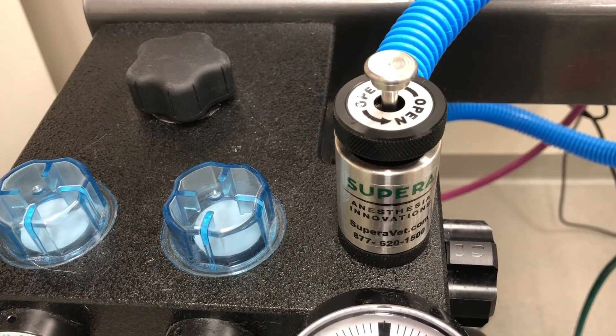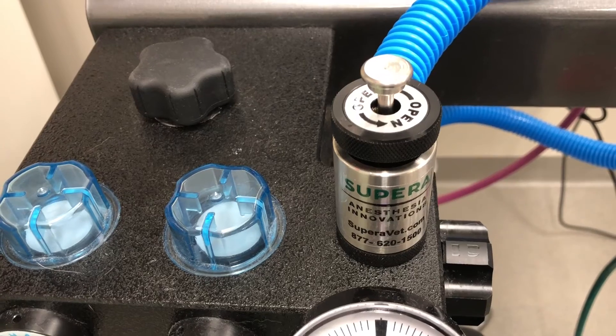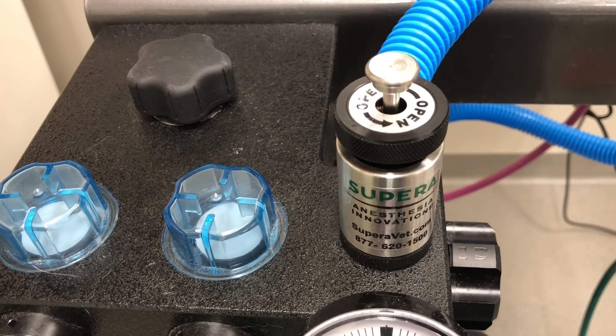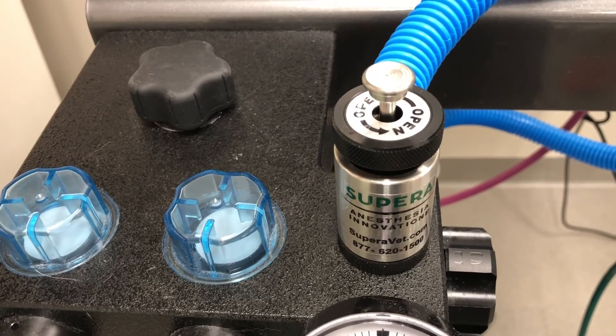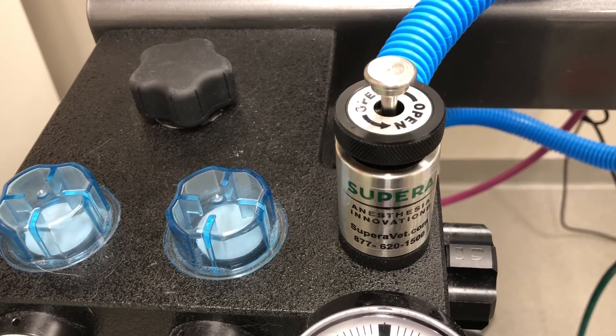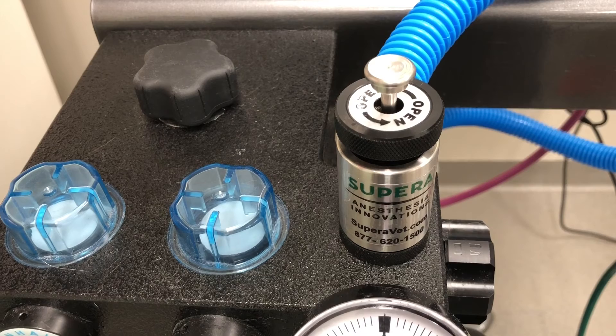There are two reasons why you ever need to close the pop-off valve. One, to place a patient on a mechanical ventilator. And two, to pressure check your machine. Pop-off valves do not need to be closed for non-rebreathing circuits or any other reason.